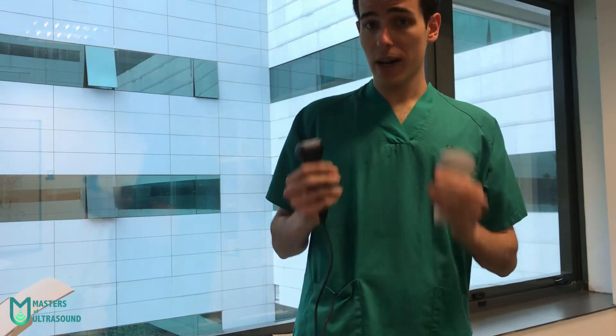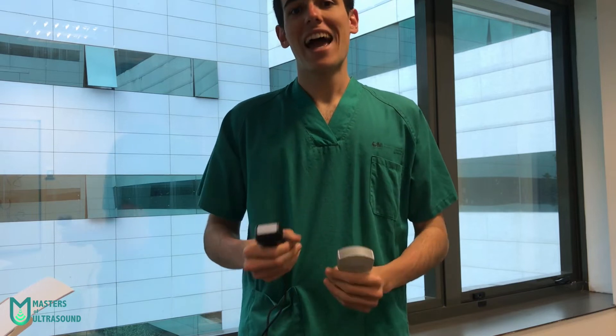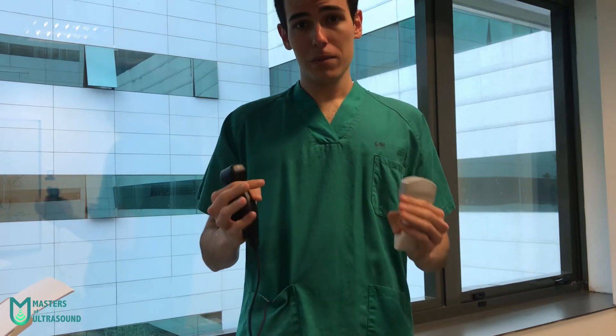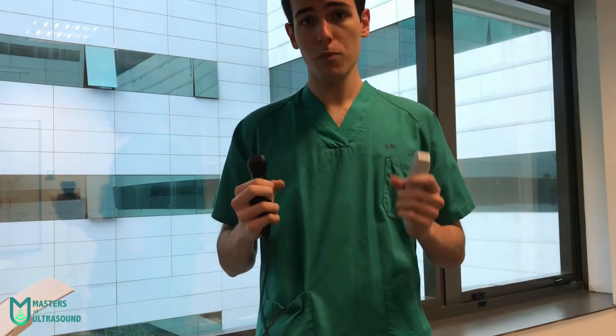I hope you enjoy this as much as I did recording it. I think you'll be able to draw your own conclusions and form your own opinion. I could say A or B, but the most important thing is that you see the images and decide for yourself.